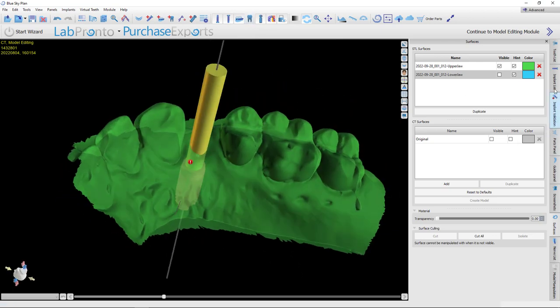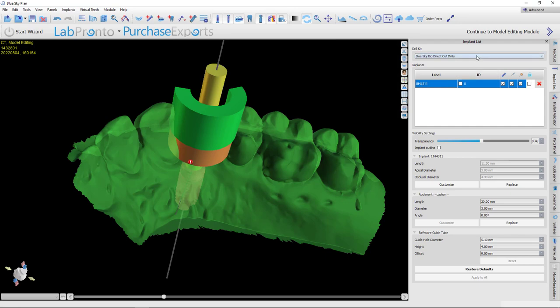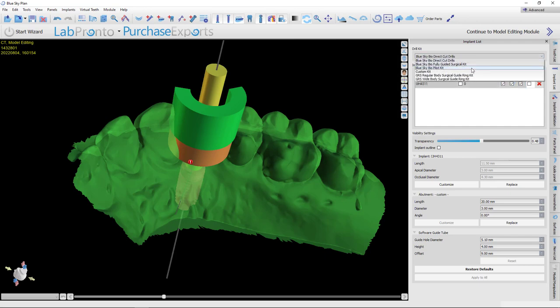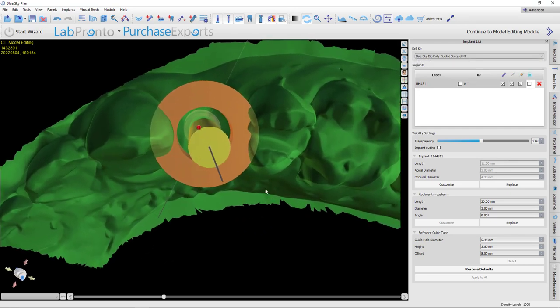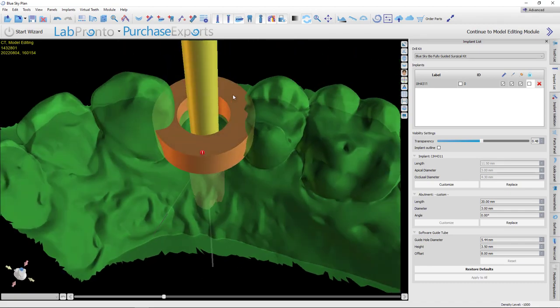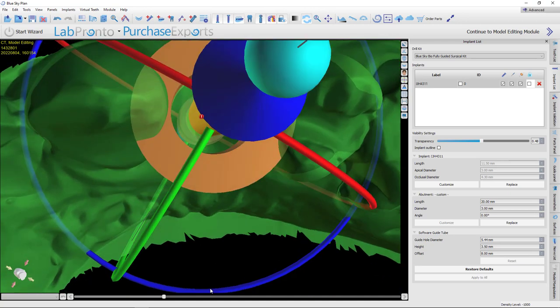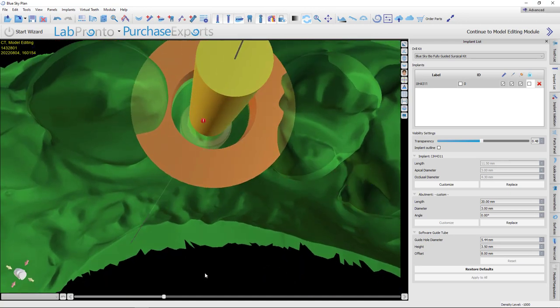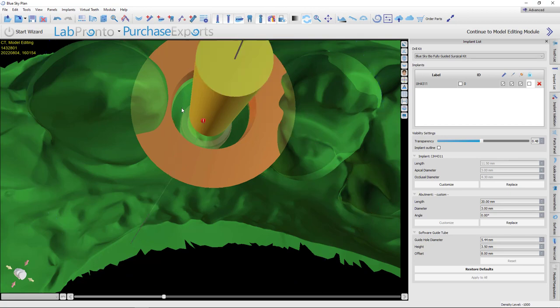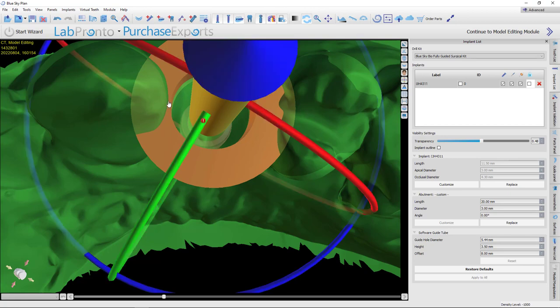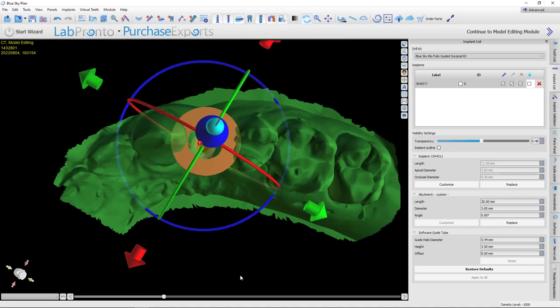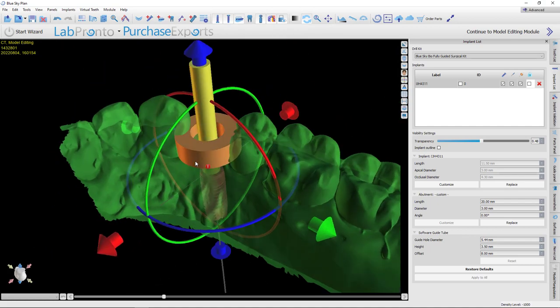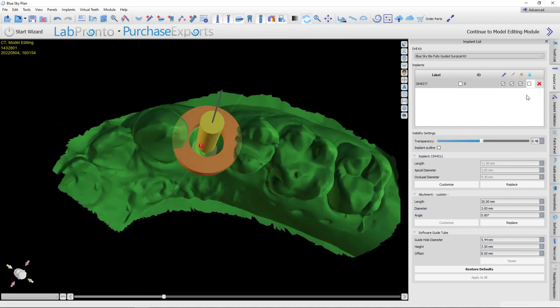And now we just need to turn on the guide tube. So let's go to implant list panel. And this third box over here is the guide tube. Now what kind of kit do you want to use? This is a blue sky, so you can choose any of the blue sky kits. I'm going to use the fully guided surgical kit. All right. And one thing that I always get questions about is, hey, my ring is impinging into these adjacent teeth. Well, as you see here, as long as that tooth is not impinging into this inner circle, it's going to be fine. You'll have a thin area here, but that's OK. That's not a problem. OK. So that looks good. And I'm going to lock this implant. Now we're ready to make the guide.